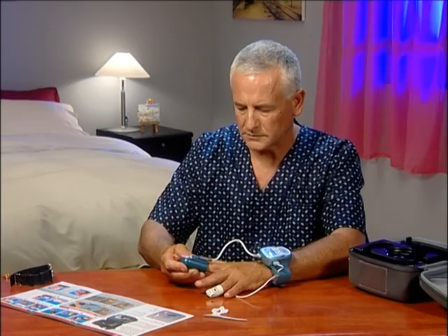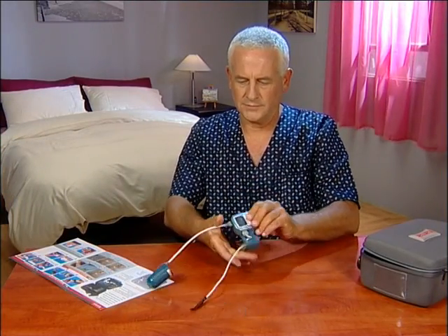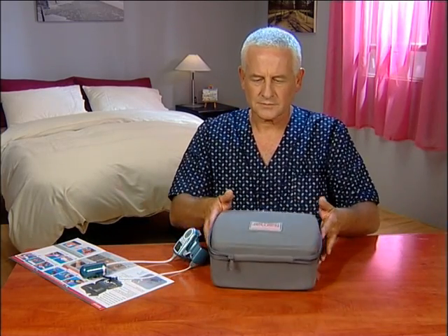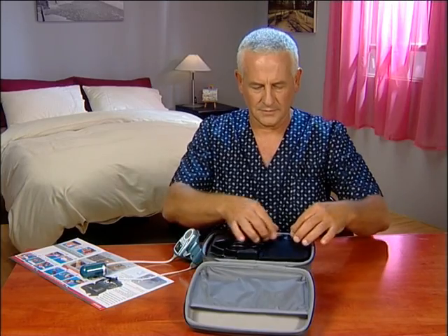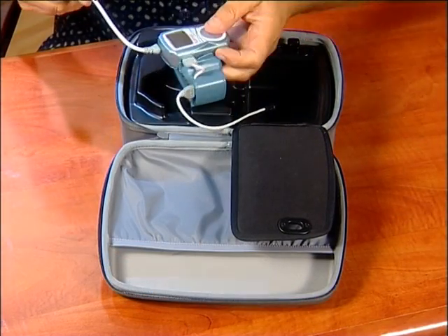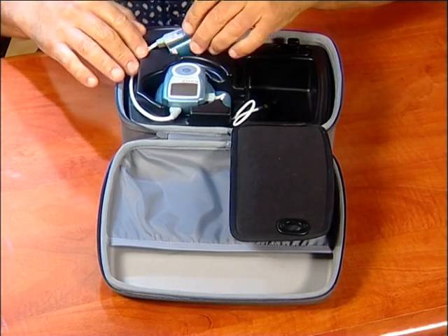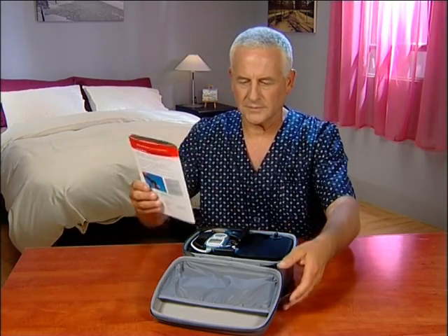In the morning, remove the PAT probe from your finger. Remove the oximeter and remove the device from your hand. The WatchPat cannot be turned off — a red light will glow from the oximeter, which is normal. Insert the device along with the PAT probe and oximeter sensor into the case. Insert the illustrated guide into the case as well.